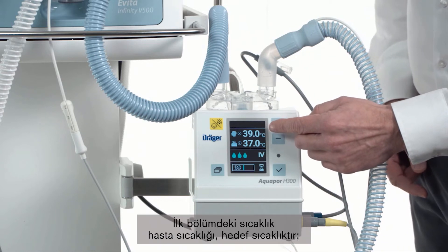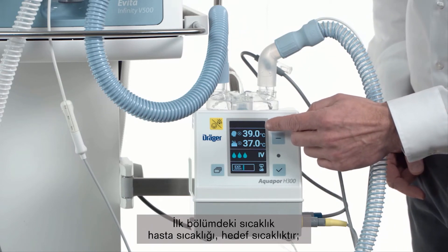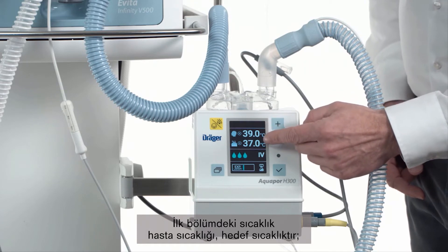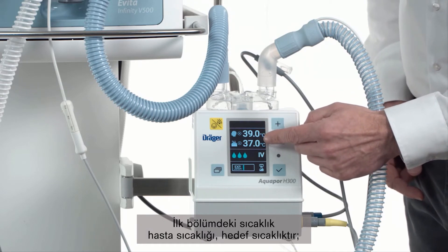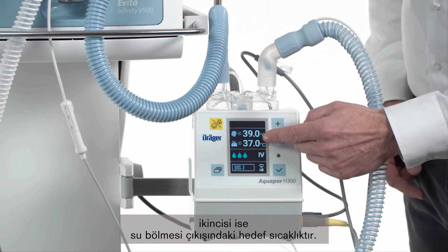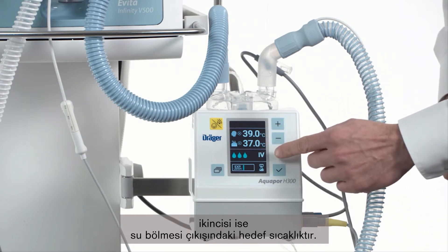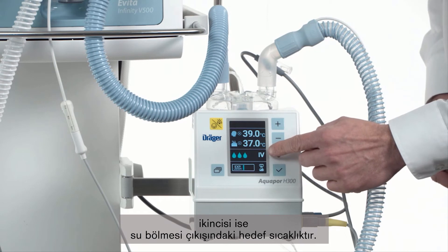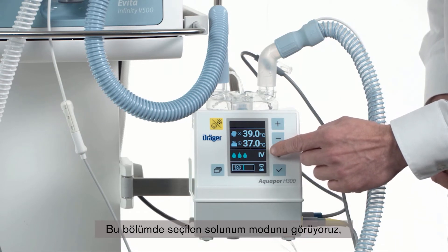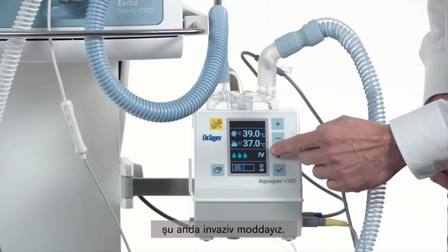The temperature in the first section is the patient temperature and the target temperature. The second one is the target temperature at the chamber outlet. In this section we can see the selected breathing mode. Now we are in invasive mode.